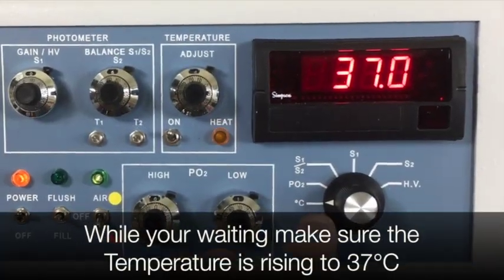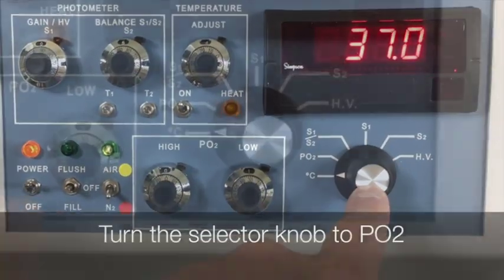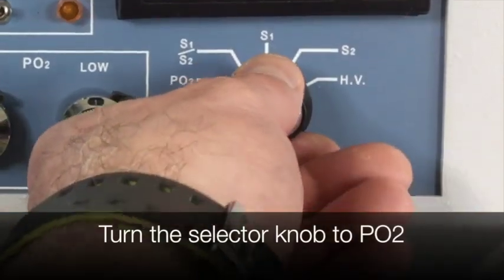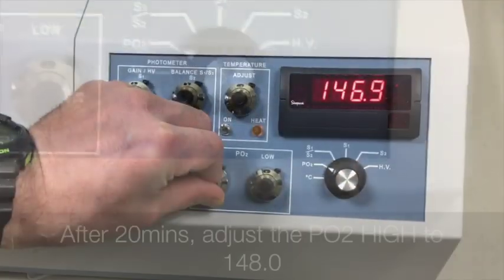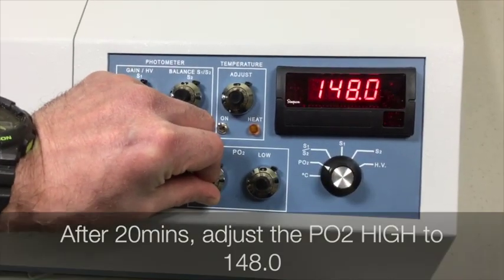While you're waiting, make sure the temperature is rising to 37 degrees. Turn the selector knob to PO2. After 20 minutes, adjust the PO2 high to 148.0.